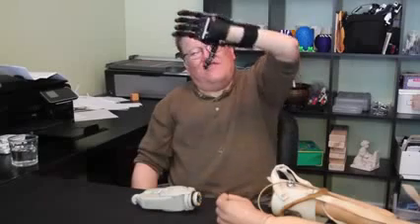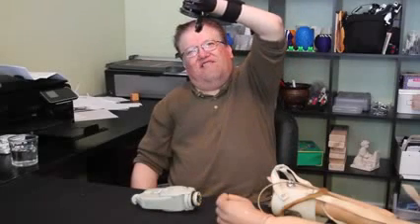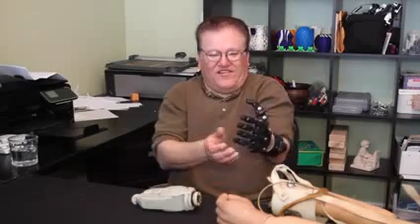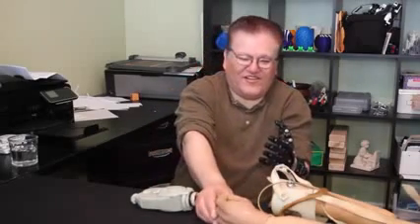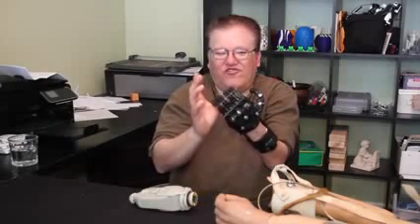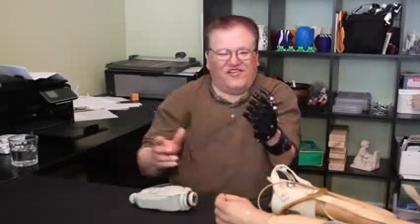So here we go. This is the finished Cyborg Beast in black — that's the fully mechanical design. So you've had a chance to use this a little bit now in your work. Has it been useful? Yeah, it's useful for carrying boxes with the tension. Because this one doesn't really grab — if I grab something, it'll just fold down. But these fingers are getting more grip and won't let go as much.